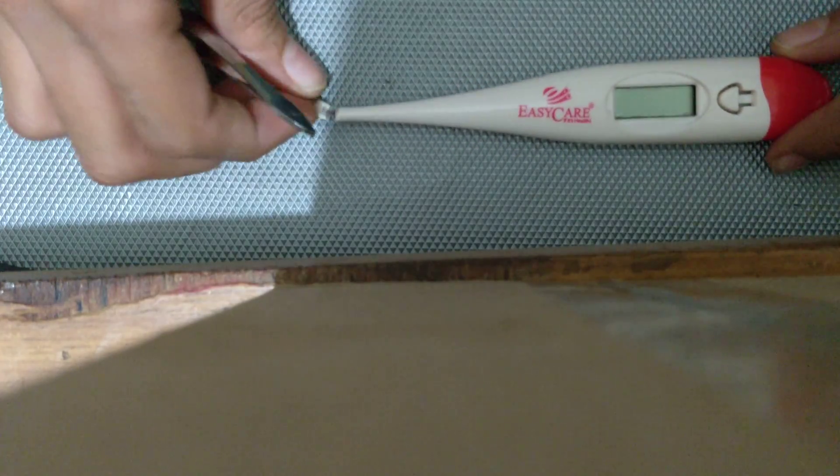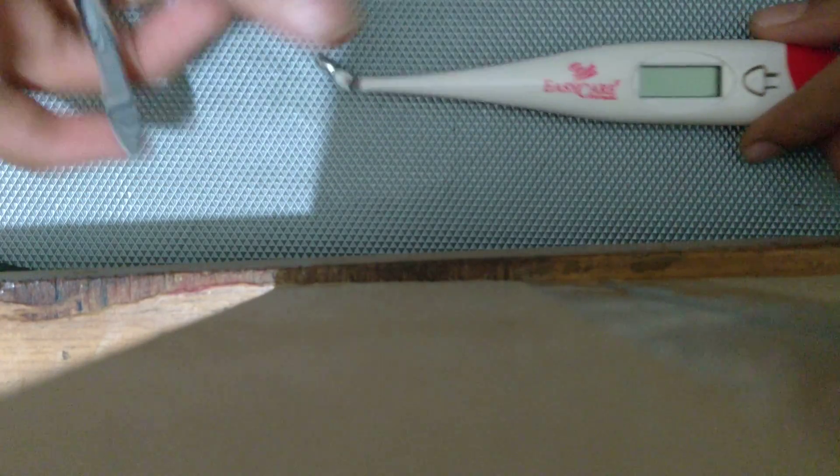Actually, first of all I was so excited that I just broke away this sensor to wire connection. But still the wire is living and it's working, and this thermometer actually didn't have its display working properly.